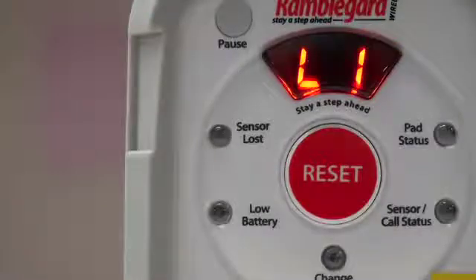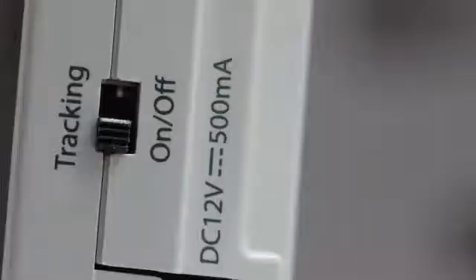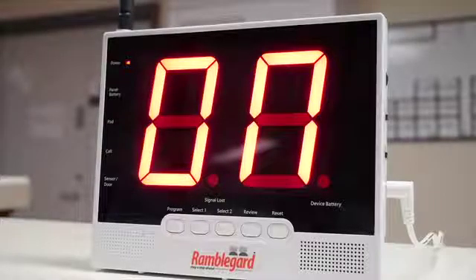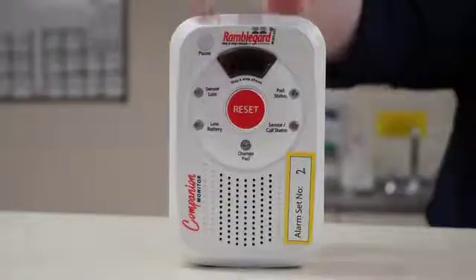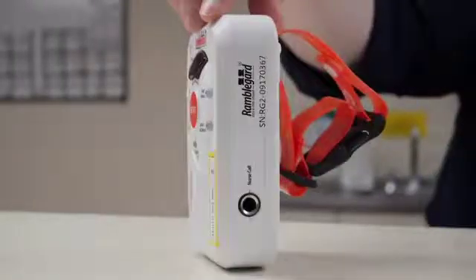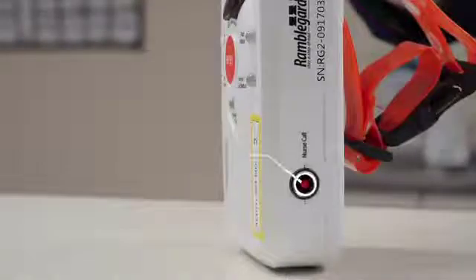There is also a sensor lost indicator which will flash if a paired sensor device goes out of range. Please note the tracking must be switched on to activate this feature. The nurse call output socket is used if you wish to connect the companion into a nurse call system.